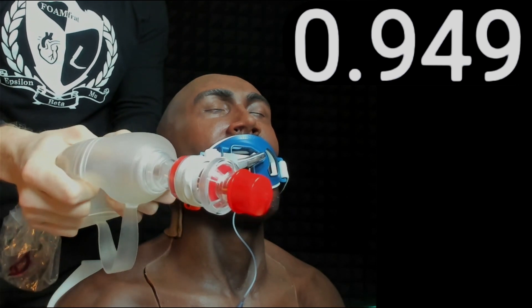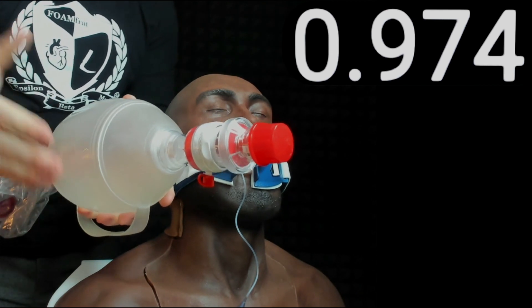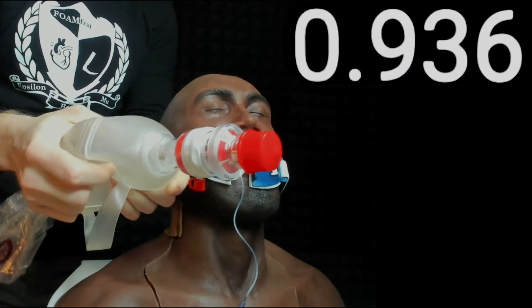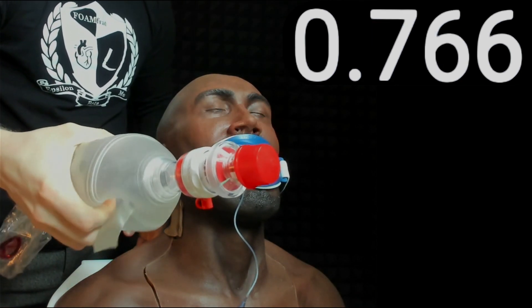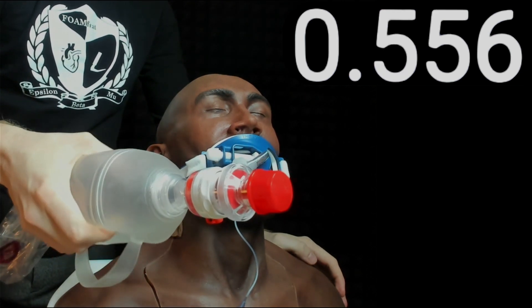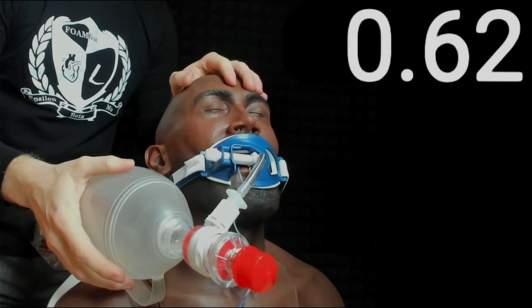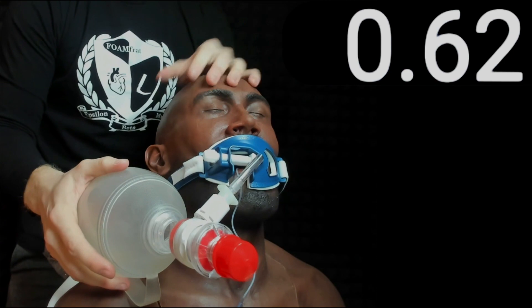Take that into context when looking at studies that say the average tidal volume being delivered was, say, 900 milliliters — that's a big squeeze on a bag valve mask. Even 600 would be a pretty good squeeze. There's 550, and there's 620 — those are pretty big squeezes. I'll reference that when we discuss the study, and then I'll show you an adult small bag valve mask, because those are becoming popular.